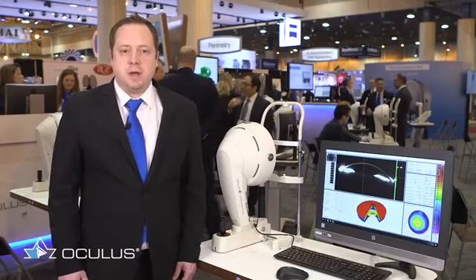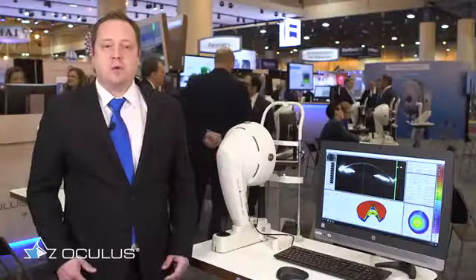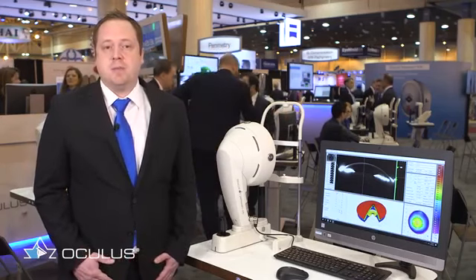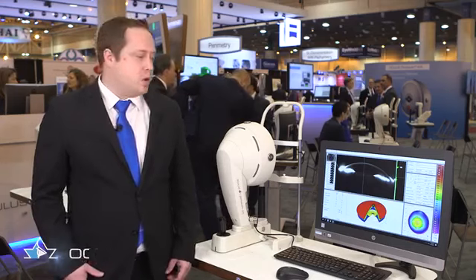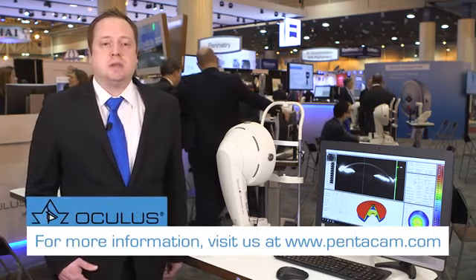So as you can see, the Pentacam AXL gives us a lot of good information for general screening, screening for refractive surgery, management of keratoconus, preoperative evaluation for cataract surgery to help determine what the best lens design for the patient is. Also, we can go one step further with the AXL and do the IOL calculations themselves for any type of eye.